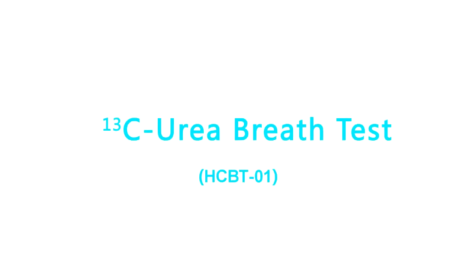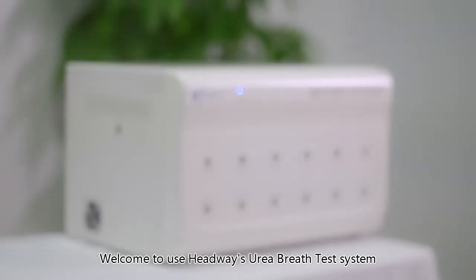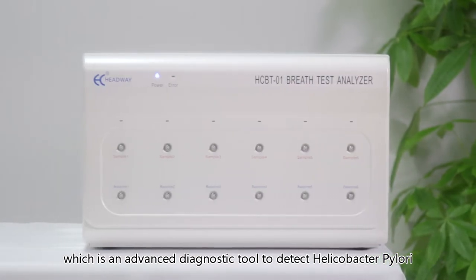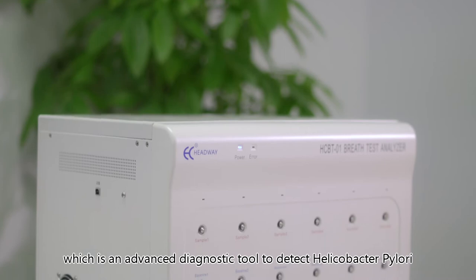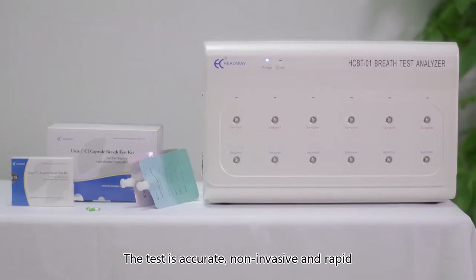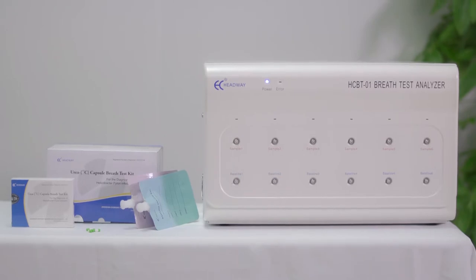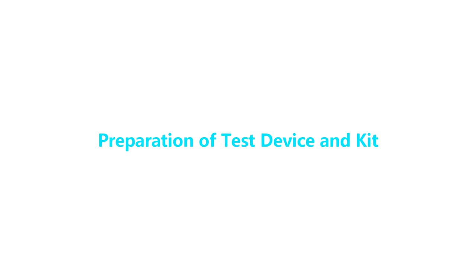Carbon-13 Urea Breath Test HCBT01. Welcome to using Headway's Urea Breath Test System, which is an advanced diagnostic tool to detect Helicobacter pylori. The test is accurate, non-invasive, and rapid. This is how it works.